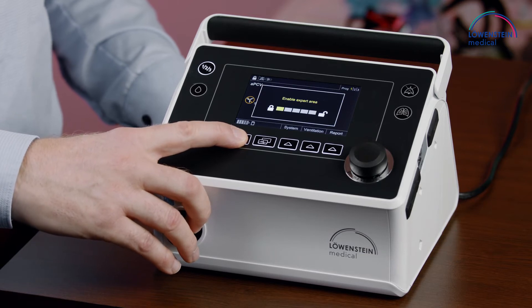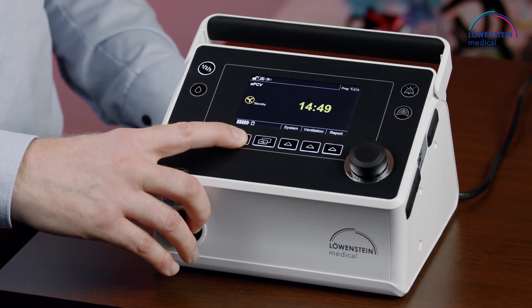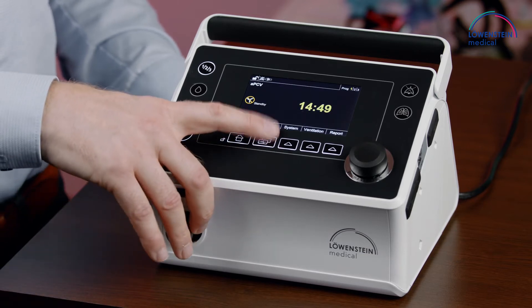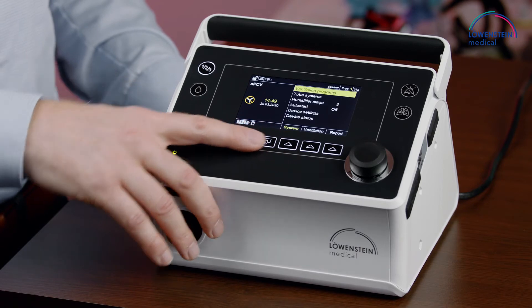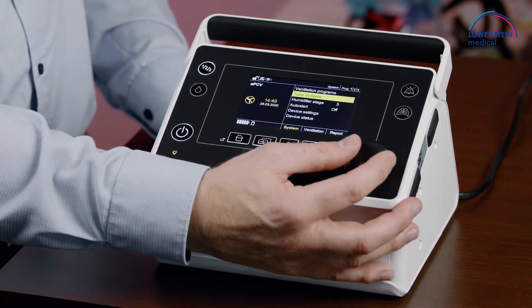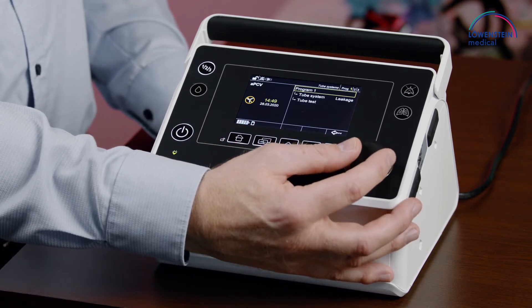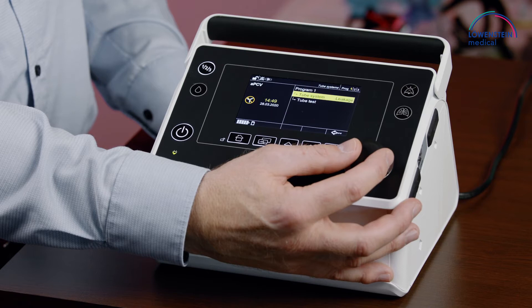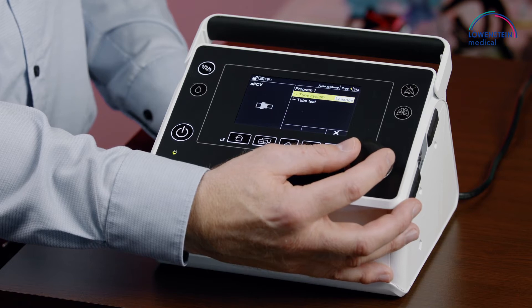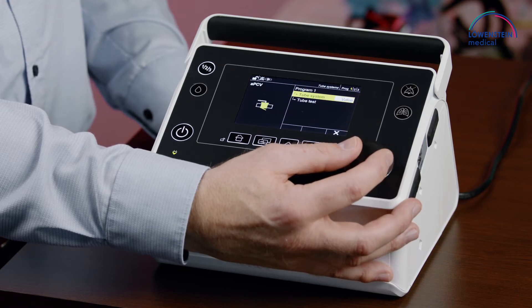Go into the system menu, go down to tube systems, select tube system, and go to valve.